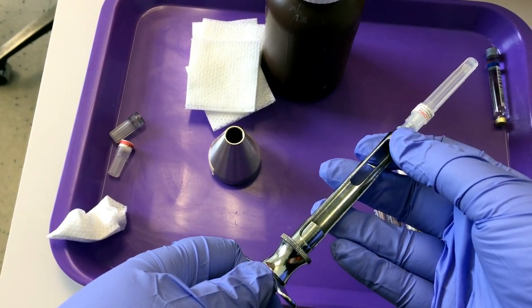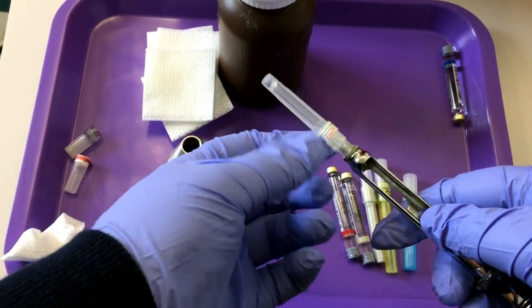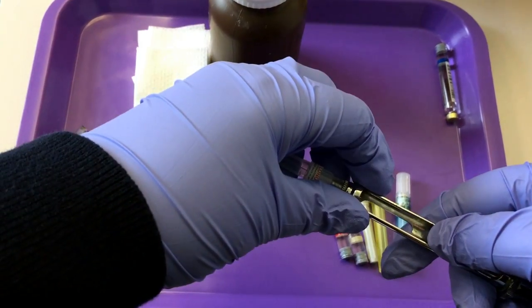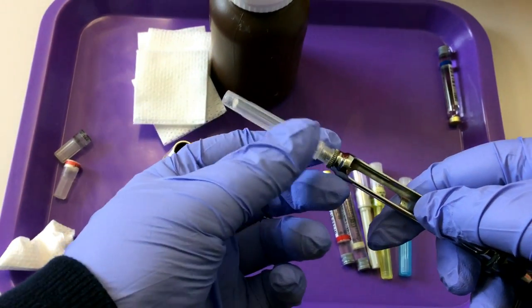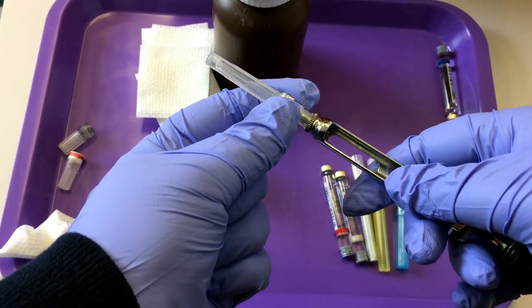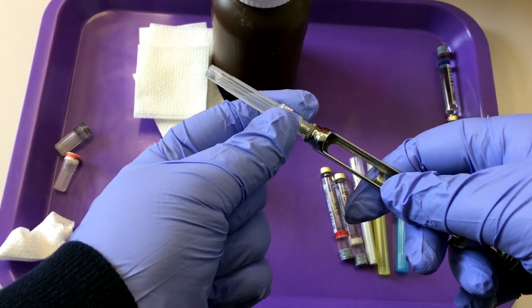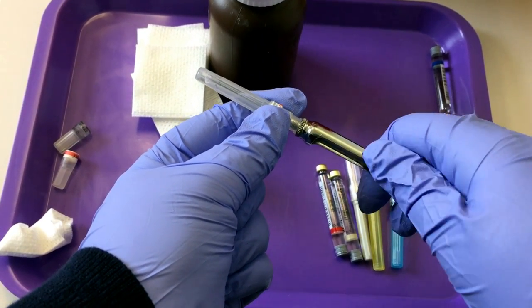To remove the needle safely, hold the needle steady. Don't hold it like this. If the cap were to come off, it's going to go directly into your hand. So hold it right here. And remember, never turn the needle. Always be in control of the needle. Don't let the needle move. You want to turn your metal syringe.